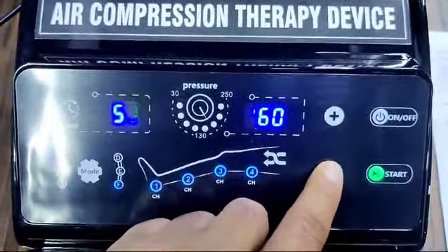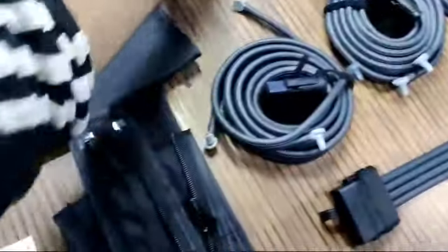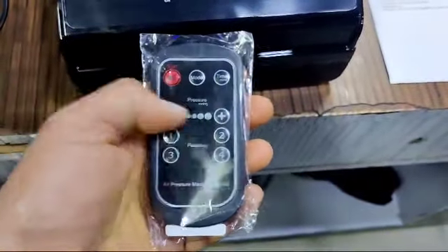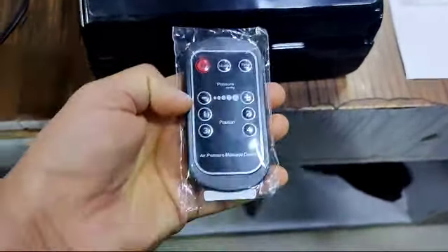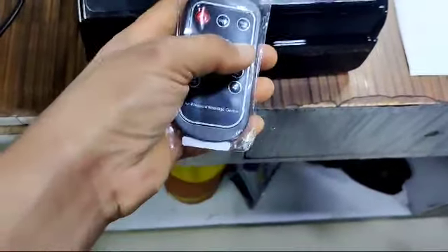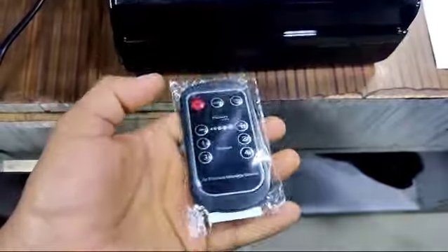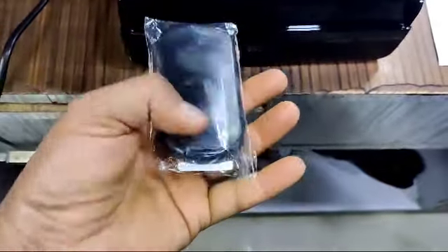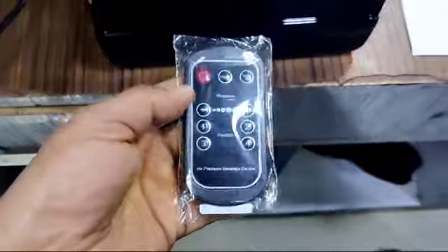All the features on the panel are also accessible via the remote control. You can increase or decrease the pressure, switch chambers one, two, three, or four on or off, and start, stop, or set the timer from the remote. You need to place the battery in the remote before use.